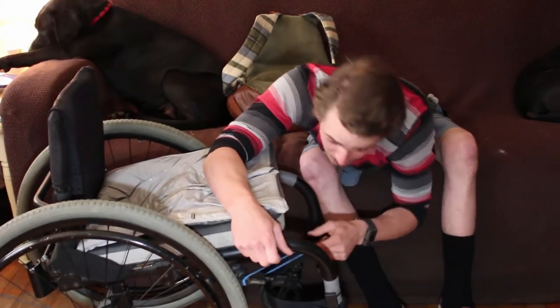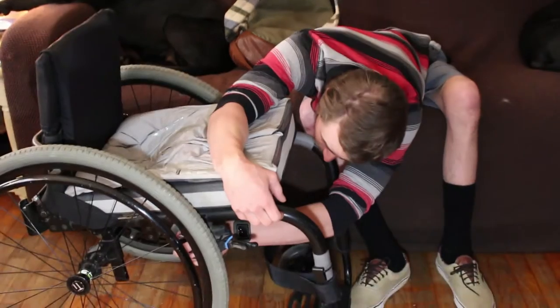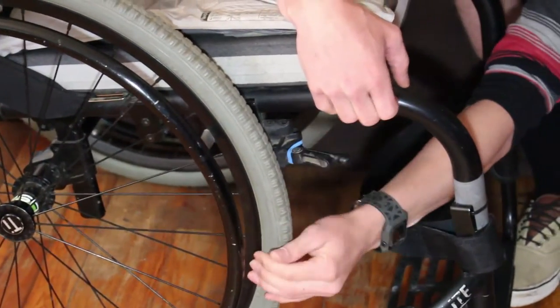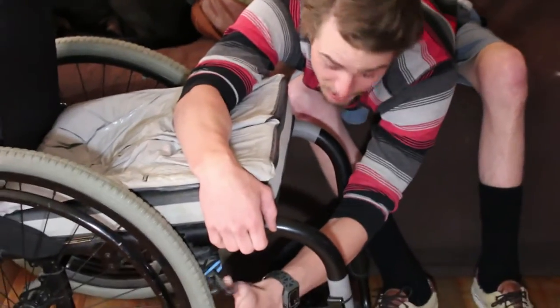Take the whole thing, stretch it out, and pull it back around the mount — back here. And it's spring-loaded again. Costs no money.